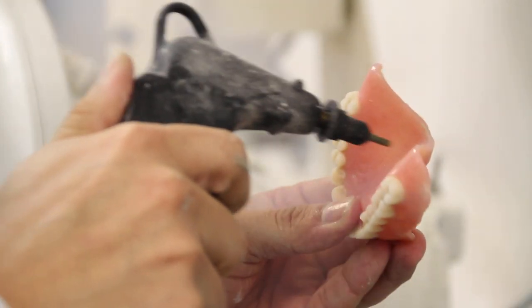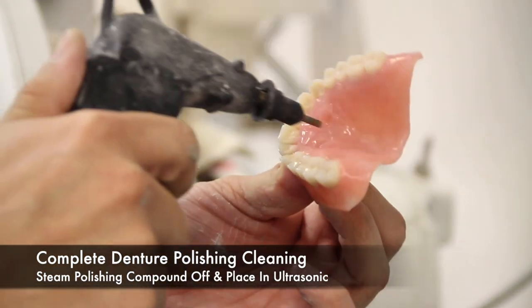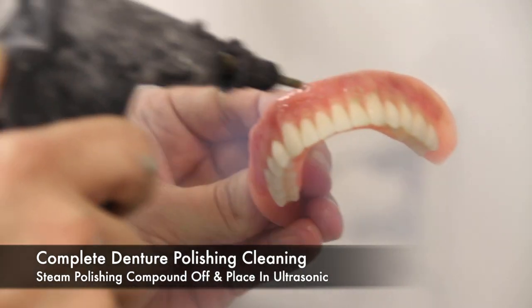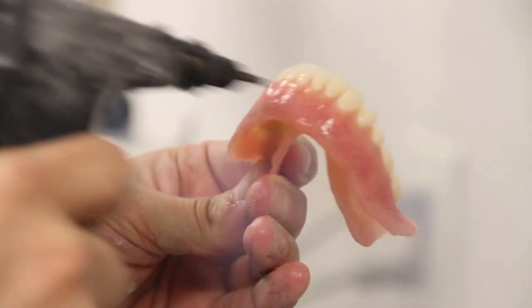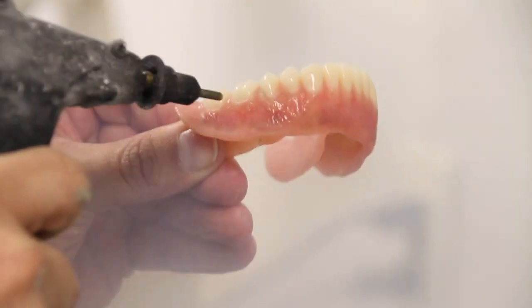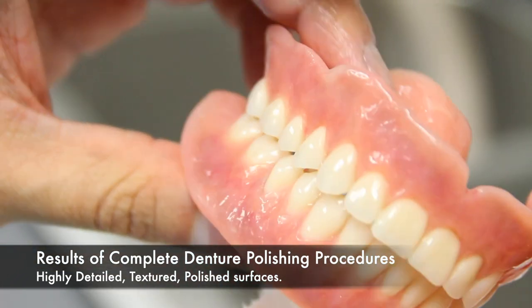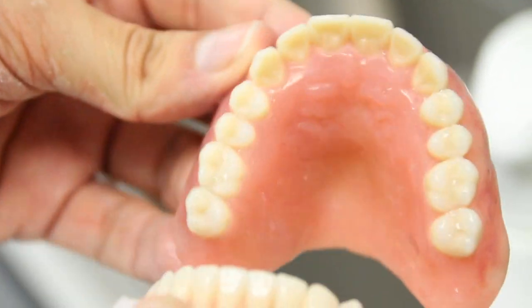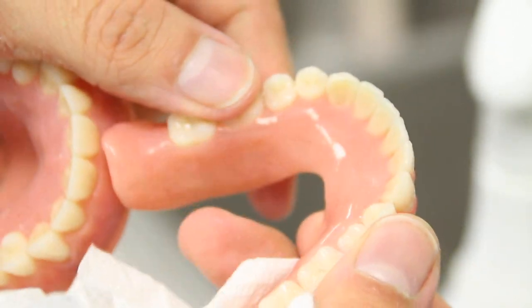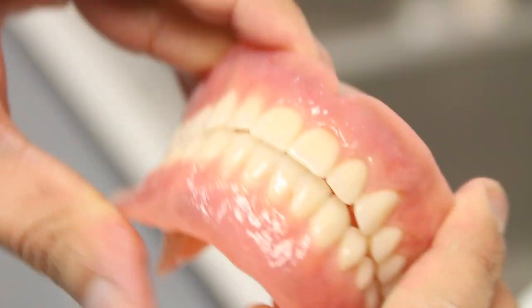When the polishing procedures are complete, you can steam off any residual compound and put the dentures into an ultrasonic cleaner. In order to evaluate if the polishing was done correctly, the denture must be dry, as a wet denture will always appear to be fully polished. If evaluating the denture you see rough areas or areas that are not reflective, it means you may need to pumice and polish again to achieve the desired results. The result is a highly detailed, textured, and polished surface. It is important to remember the difference between something that is rough and something that is textured. Something rough is unpolished and unfinished, while something textured can be finished and polished. Rough surfaces will trap food, while textured, polished surfaces will actually prevent food from being trapped on the denture.